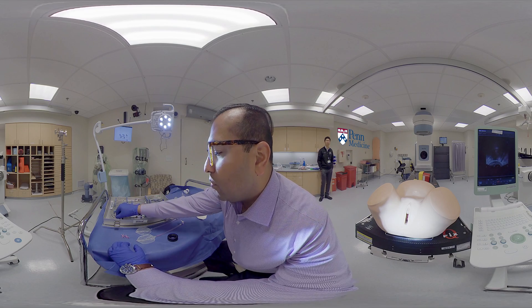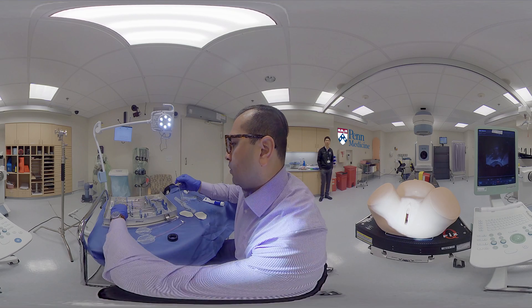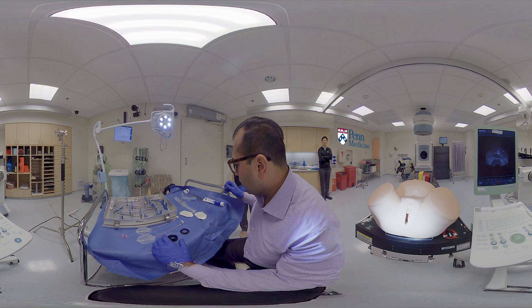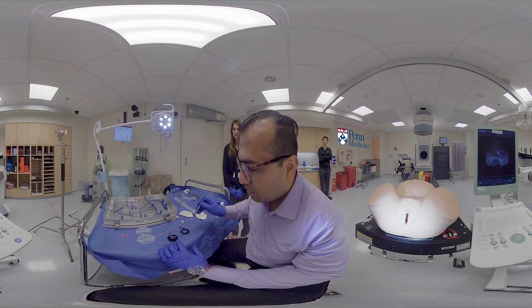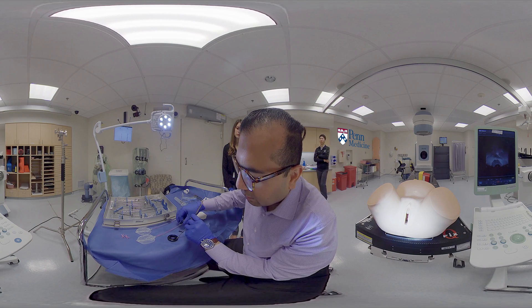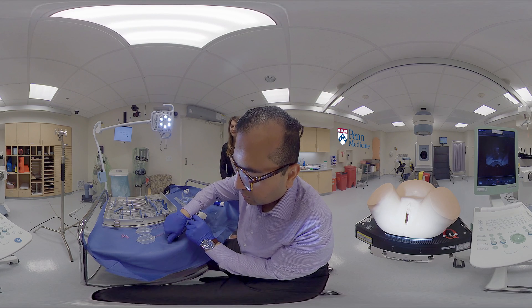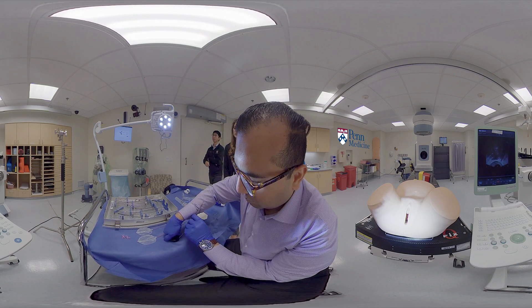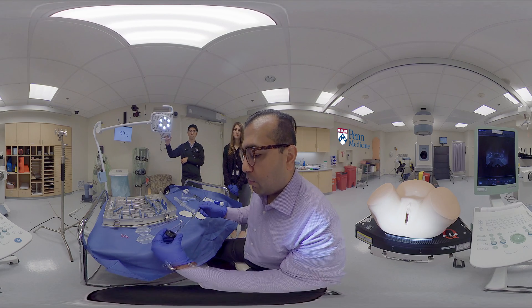We'll plan to use a 60 degree tandem angle, so we select the matching 60 degree ring. To assemble the ring, we place the titanium applicator with a little bit of surgical jelly. This allows us to see the ring on T2-weighted MRI for MR-based brachytherapy planning. The ring is placed flat into the buildup cap and then the top is screwed on until it is flush. This would be a fully assembled 60 degree titanium ring with a 5 millimeter buildup cap.